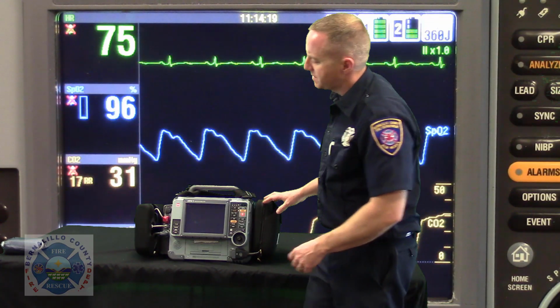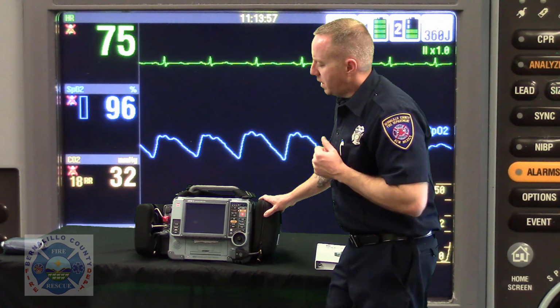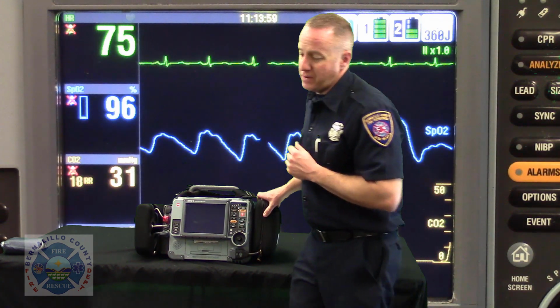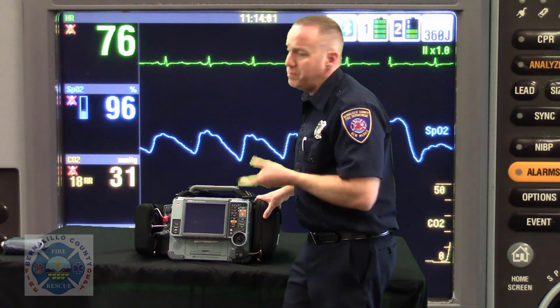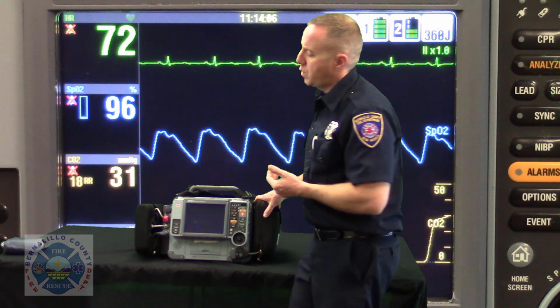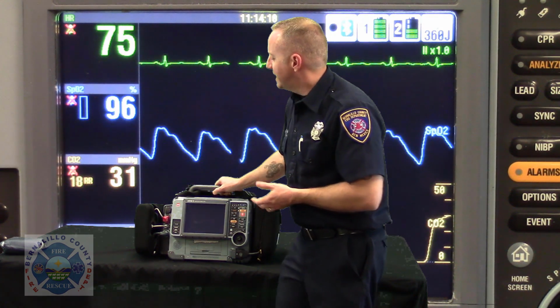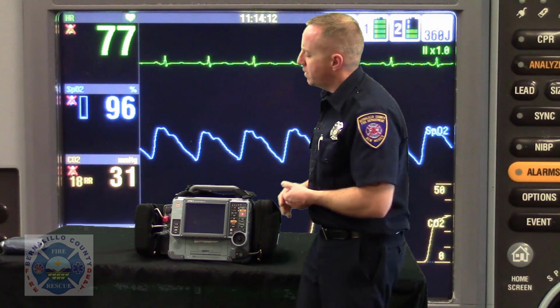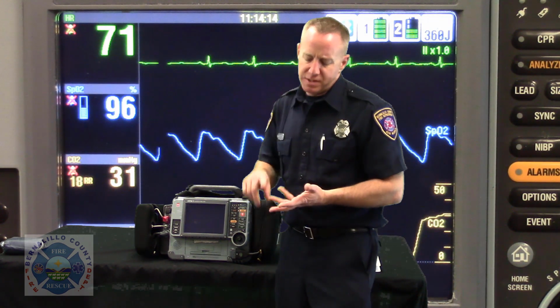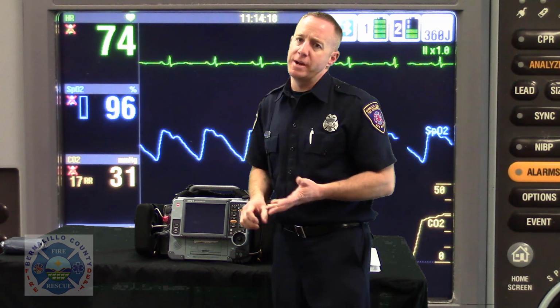But what's interesting is that you notice how this is set to the left side of the monitor. You can really set your patient assessment off on the right foot by simply putting your patient in a position to where the monitor rests at the patient's left side. When Lifepack designed this monitor, they understood how most ambulances and rescues were configured for patient transport.